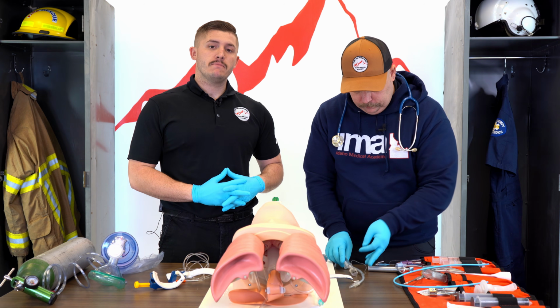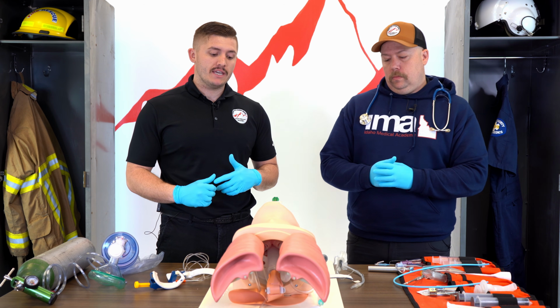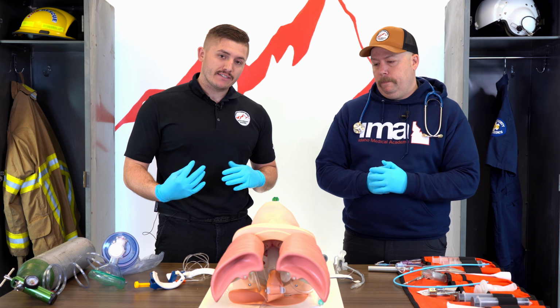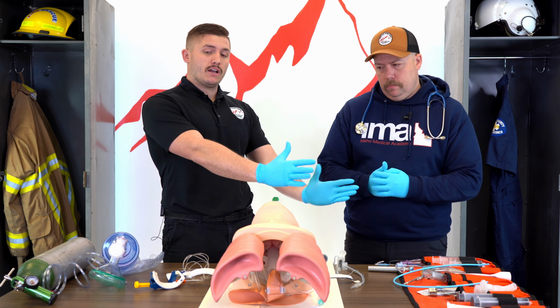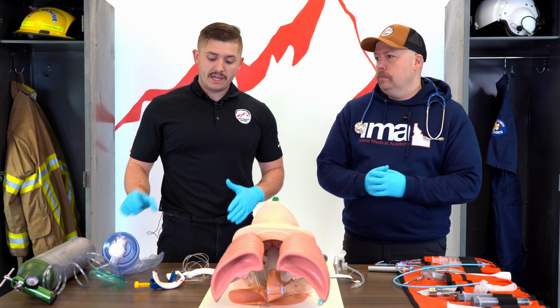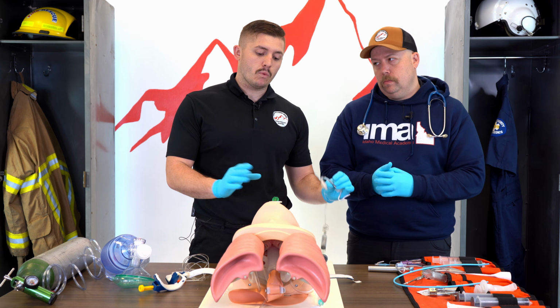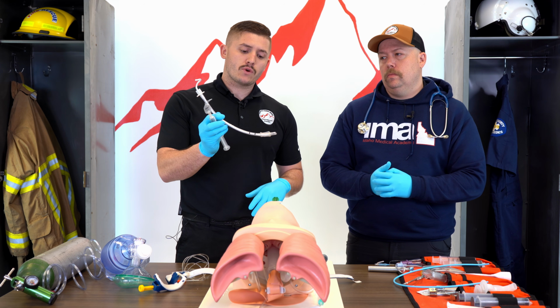Okay, another means of managing the airway we're going to talk about would be an ALS procedure. It's going to be intubating the patient. Again, this is a paramedic scope procedure. As an EMT basic though, this is something I'd be expected to assist with, whether I'm setting it up and getting all of Chris's tools out so he can do it, or I'm managing the airway, and once he's ready for me to help him, I'm going to help him. So this is the best way to secure a patient's airway. This is our ET tube, an endotracheal tube.